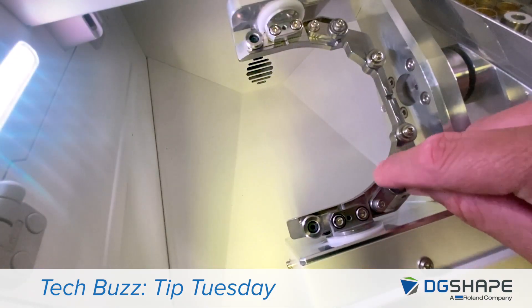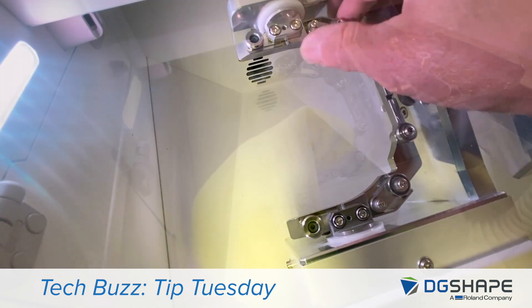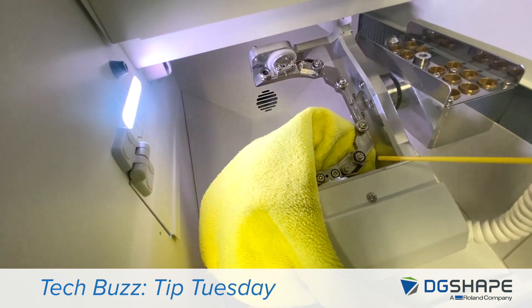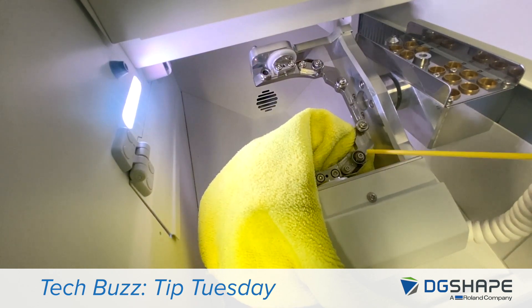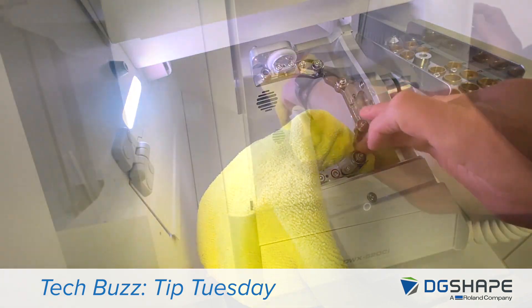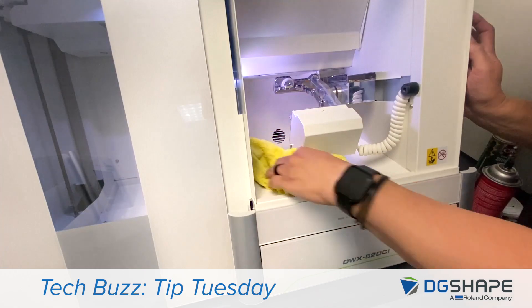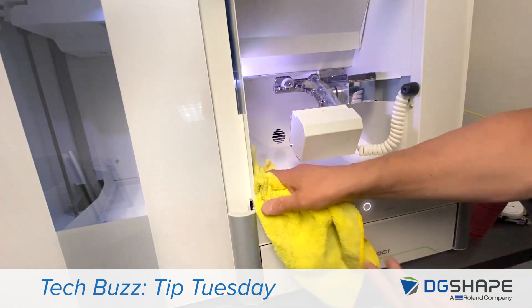Go ahead and inspect them — very well — both of them. Next, we'll spray a slight lubricant on the bearings. Make sure that it gets inside the assembly. Rotate them. Now, a final clean around the mill before we get started with the test.